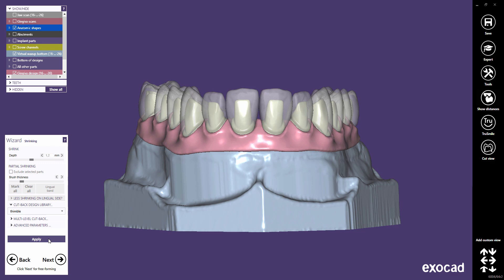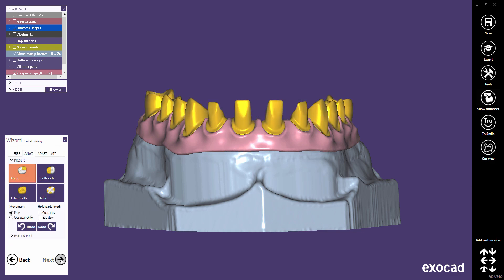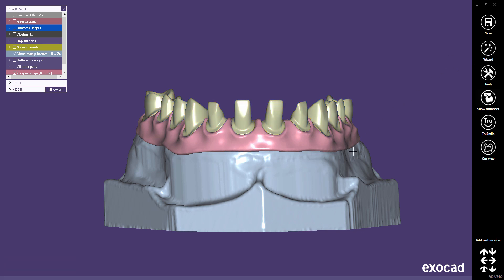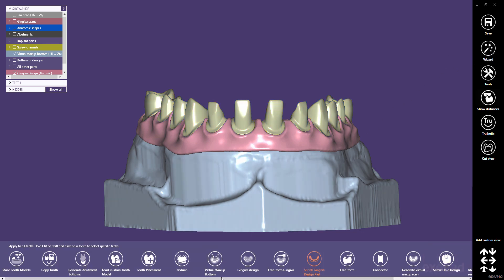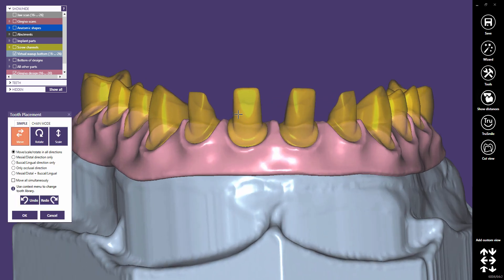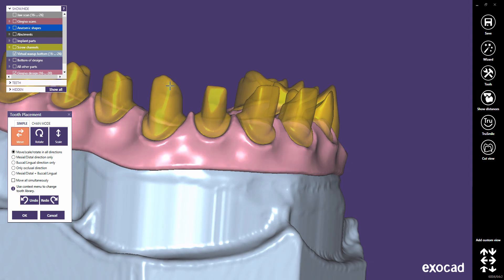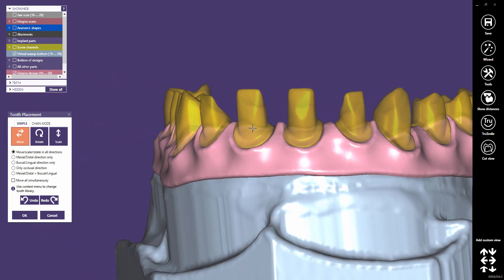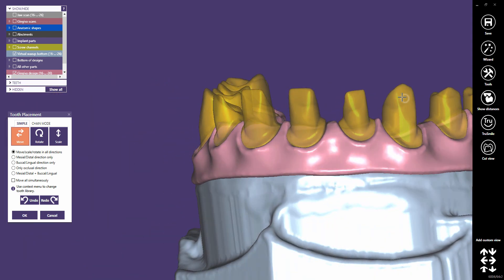Proceed to the next step, which is the free-forming step. Before you do that, I recommend switching to the Expert mode and choose Tooth Placement to do some fine tweaking on the Thimble Crown's positions, if necessary. Here you have exactly the same placement features as in the tooth placement. You can still move, rotate, and scale the cutback libraries.